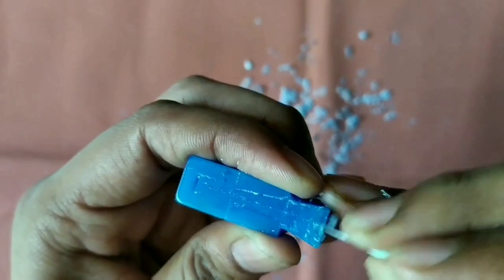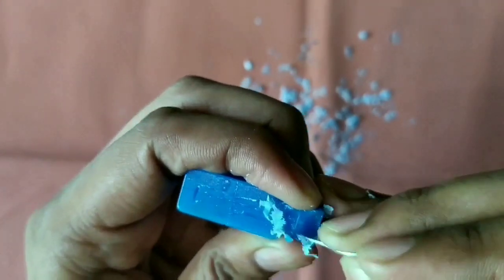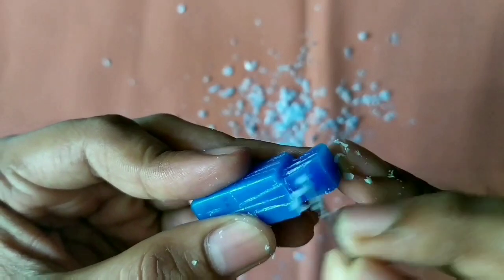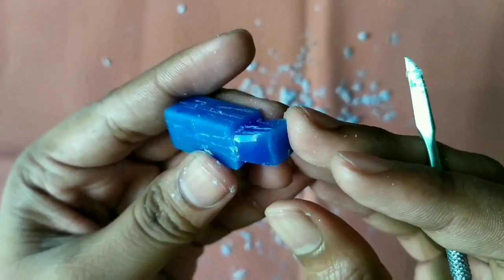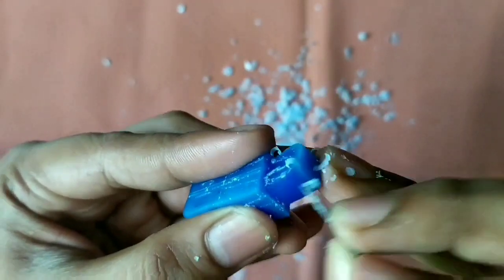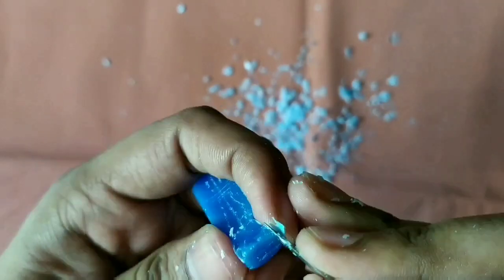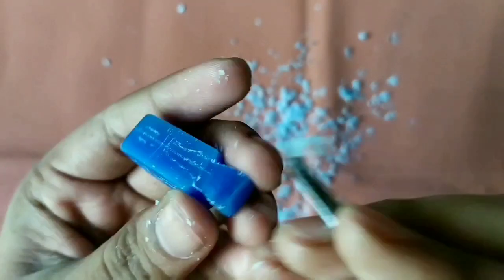From the labial side, start removing the wax. The crown is a bit flat as compared to the central incisor. Then start removing the wax on the lingual side. Keep the cervical third area as it is and remove the wax on the other side.